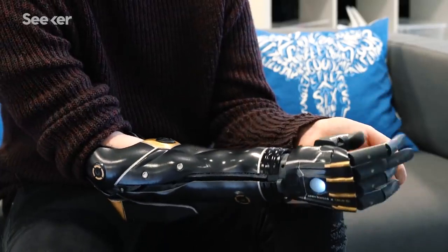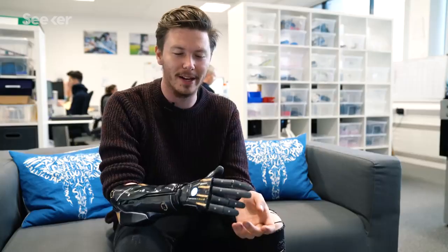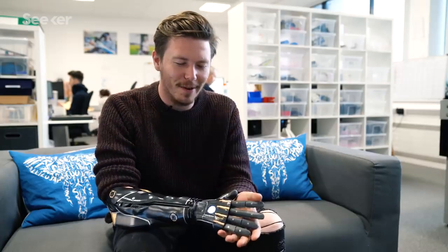I can change the thumb, and then if I press the middle button it flashes — because everyone is so distracted by the arm. By opening and closing it, people are like, 'That's mad!' And I just love the reactions.